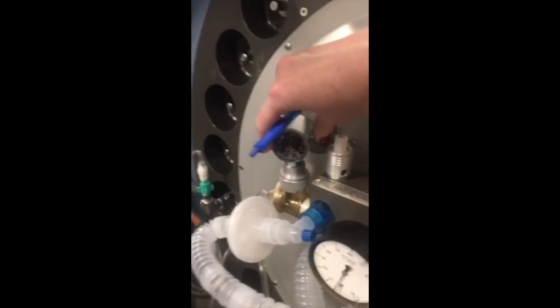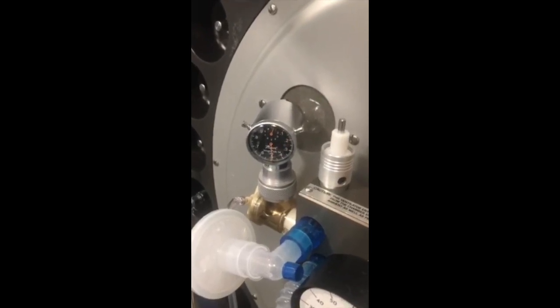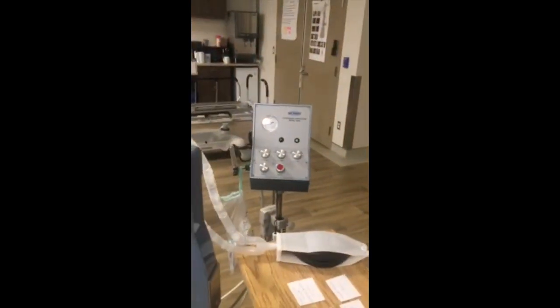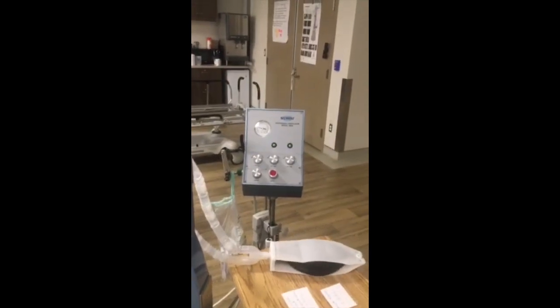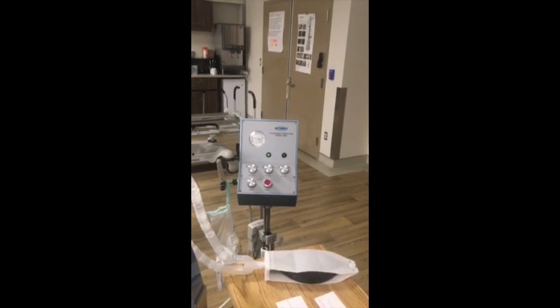So how we measure that here in hyperbarics is we actually have a Wright's respirometer that shows us the volume that's coming out. So right now that's 500 cc's or 500 mils that the patient is blowing out. Okay. So in a second we'll just demonstrate what if we want a rate of 20 and a minute volume of 10, what we need to do for that.